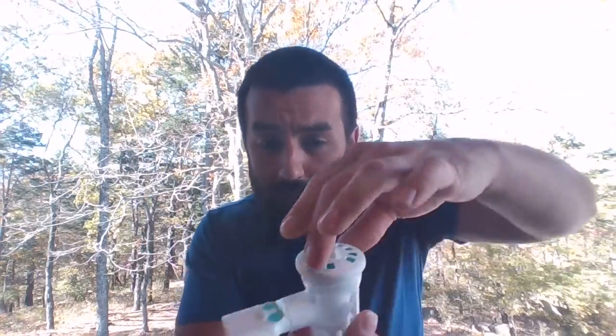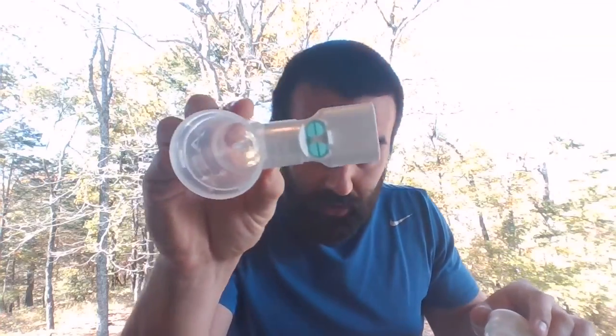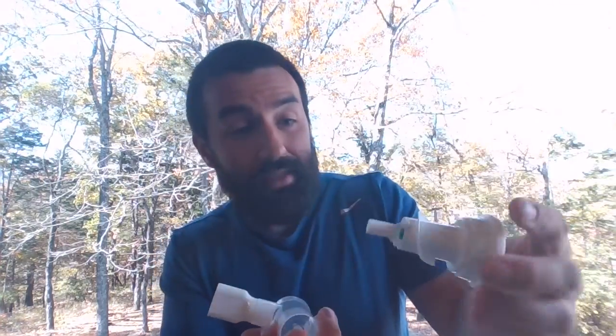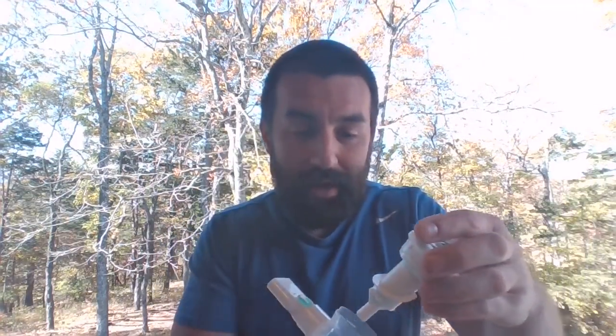All right, so as far as how this works, twist and this piece comes out. You can see our little jet right there, okay? But there's some other crazy things going on inside of this thing that are a little bit more sophisticated. So I still have a baffle. I still got all my regular lateral wall pressure drop and entrainment and everything.